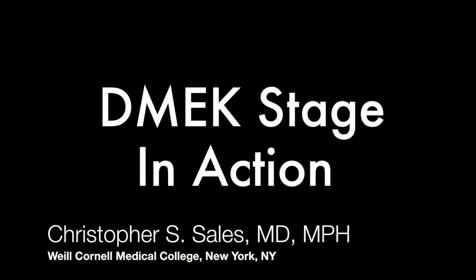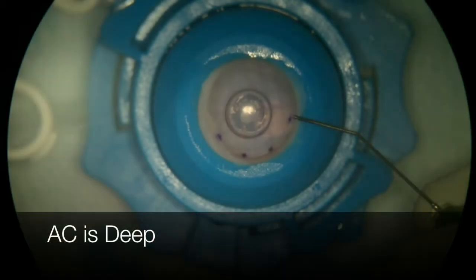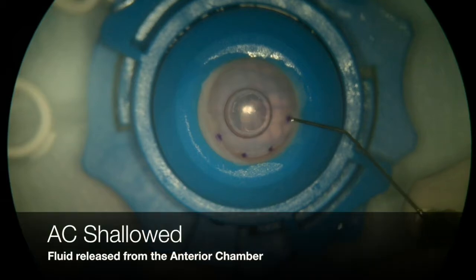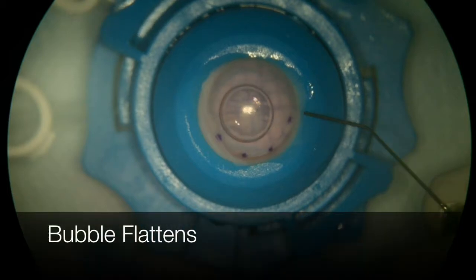I'd like to share with you a short video about how the DMEK stage can help you simulate DMEK surgery in the wet lab. Here the anterior chamber is deep, which can be visualized by looking at the blue that's showing through the latex diaphragm because it's in contact with the artificial anterior chamber. When the anterior chamber is shallowed, volume and pressure is released from the anterior chamber, which allows the latex diaphragm to come forward off of the artificial anterior chamber.